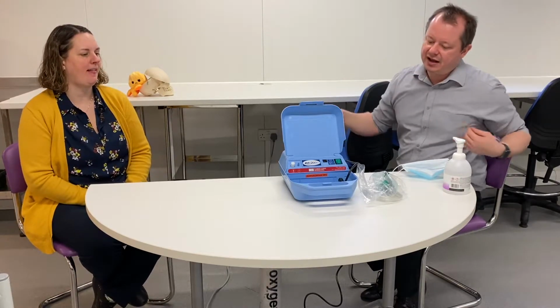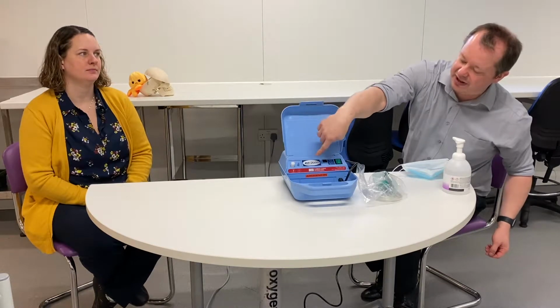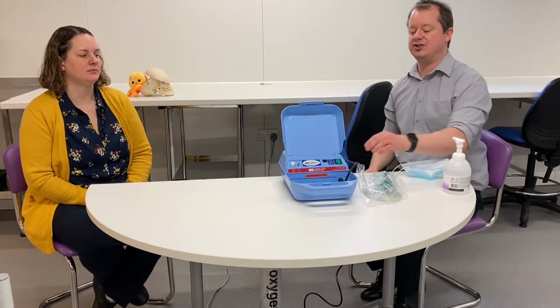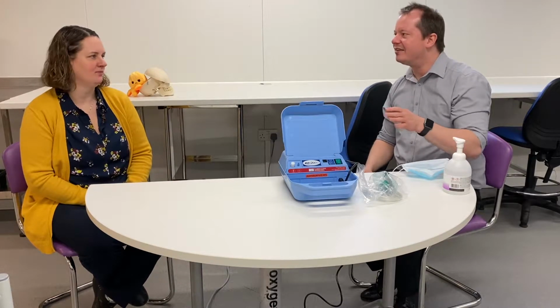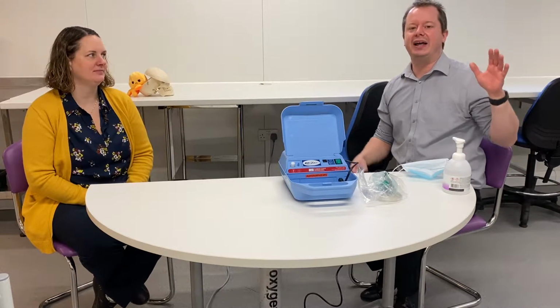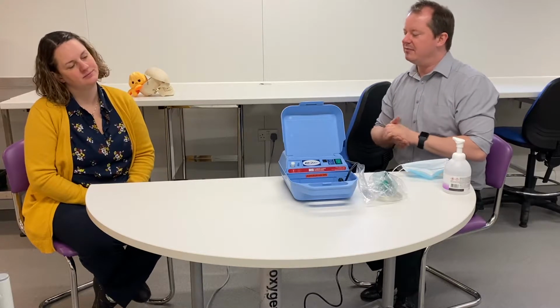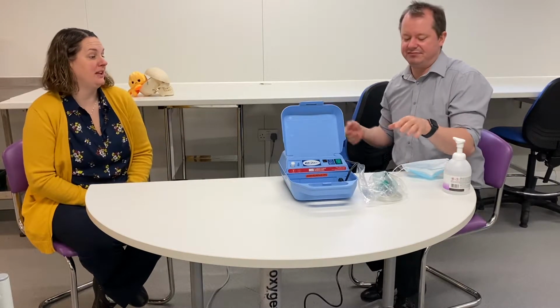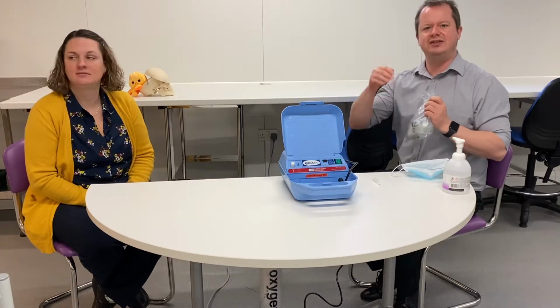Nebulizer machines are essentially an air compressor with a filter, so they aren't really that complicated. They just plug in and they have a filter which sucks the air in, they have a tube where the air comes out, and they just have an on and off switch. They're a bit noisy. Not fun, and when you've got several of them going in a bay in a ward, it's a bit noisy. But I don't know, maybe someone will invent a quiet one. Maybe. Hopefully.